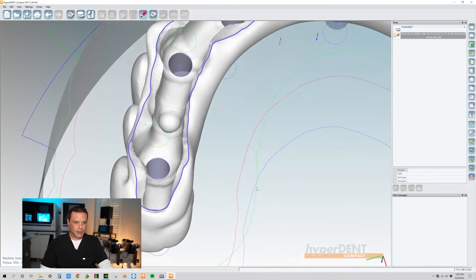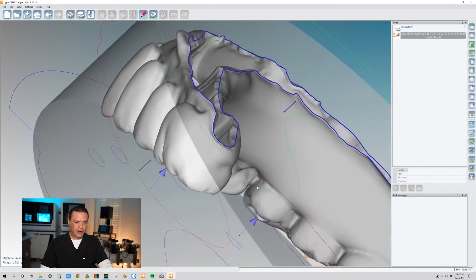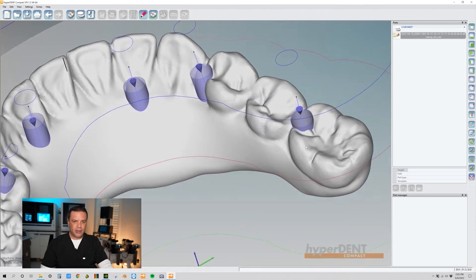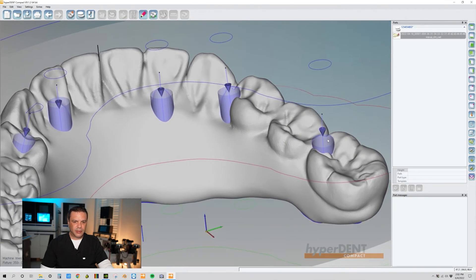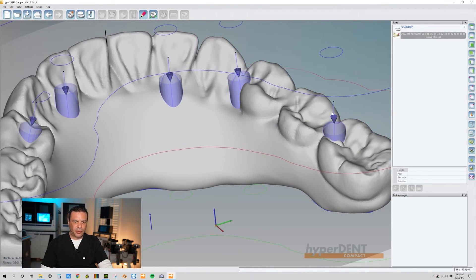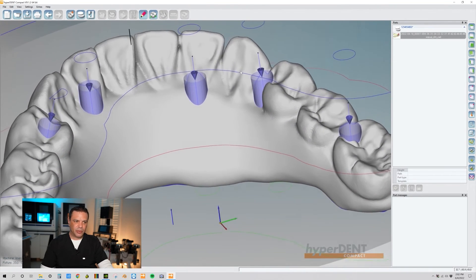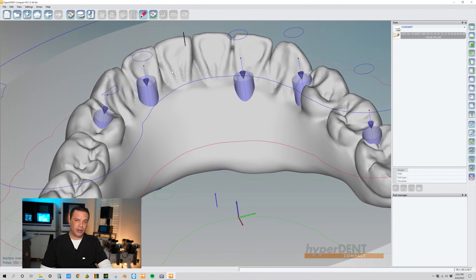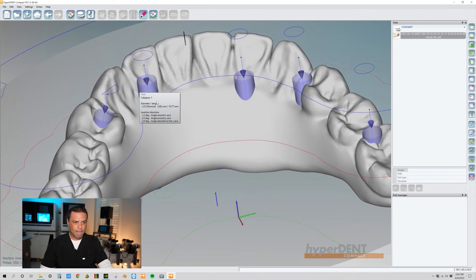Perfect. Let's go ahead and take a look. Now take a look at all the arrows. All the arrows are going towards the cavity side so uniformly we're not going to have any errors when we're trying to do calculations.